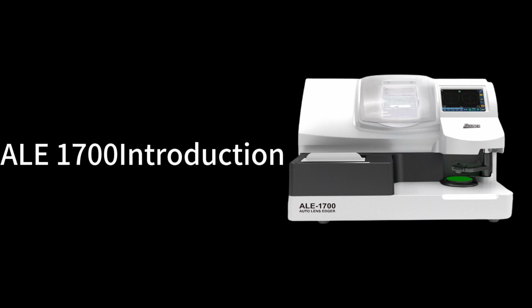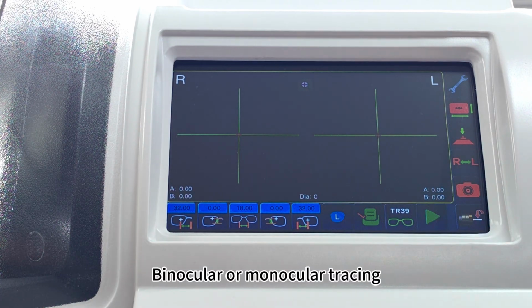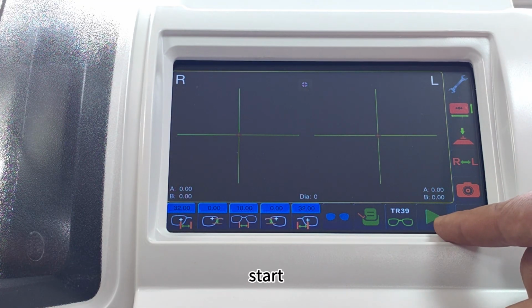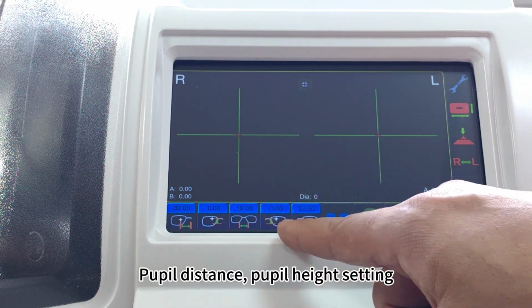ALE-1700 Introduction. Binocular or monocular tracing. Tracing needle height adjustment. Frame material selection. Start. Pupil distance, pupil height setting.